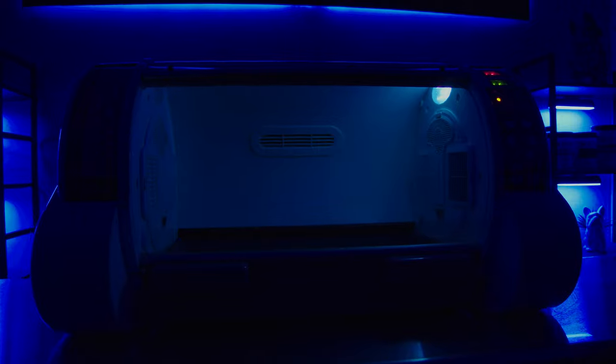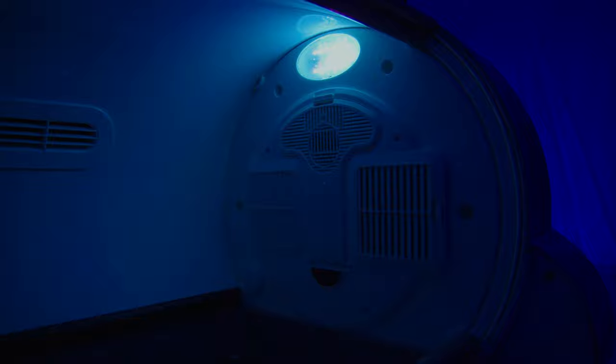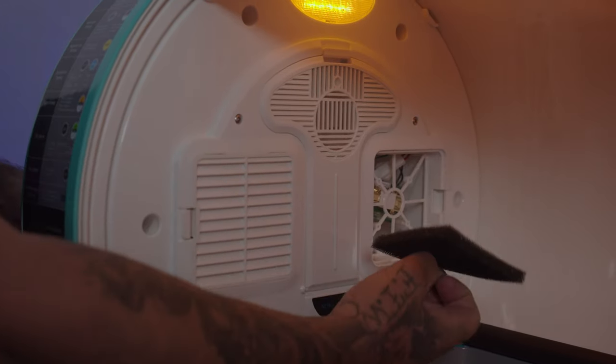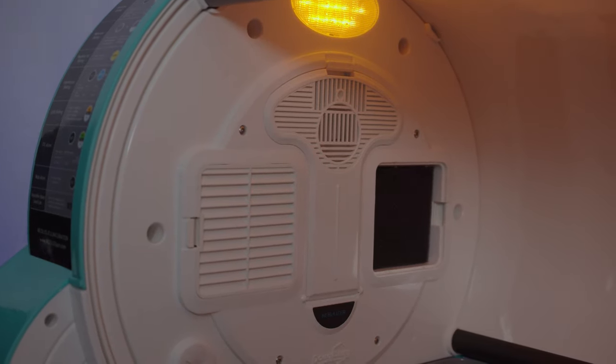When it comes to taking care of puppies, cleanliness is your best friend. The UV sanitation light helps make your job easier by keeping your puppy's environment cleaner. Another feature included in the Aeolus ICUs is the negative ion system. Negative ions help decrease the amount of bacteria floating around inside of the intensive care unit.